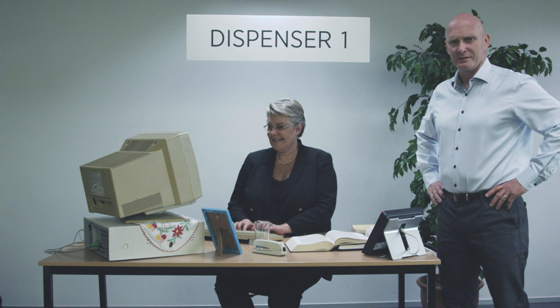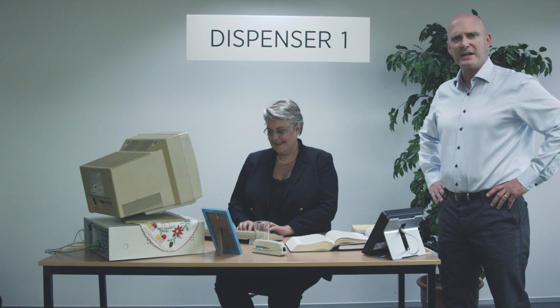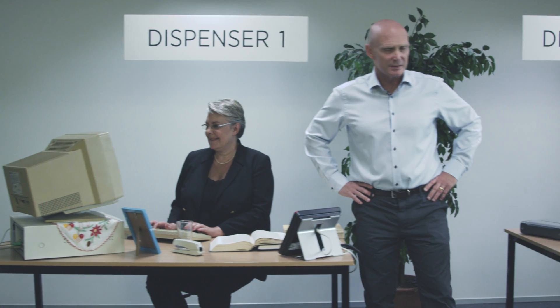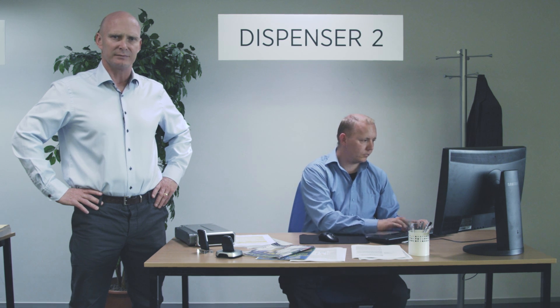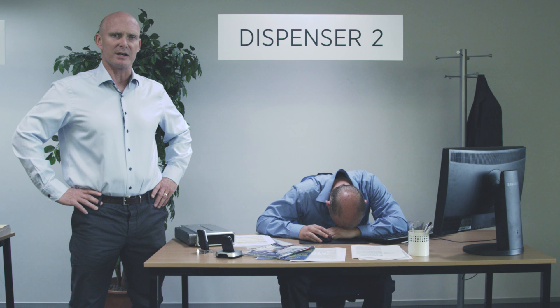The original compass — an amazing piece of fitting software. Detailed, fine-grained, unbelievably thorough. But let's be honest, it wasn't for everybody. If you weren't used to using it, it could get pretty complex. Pretty fast.